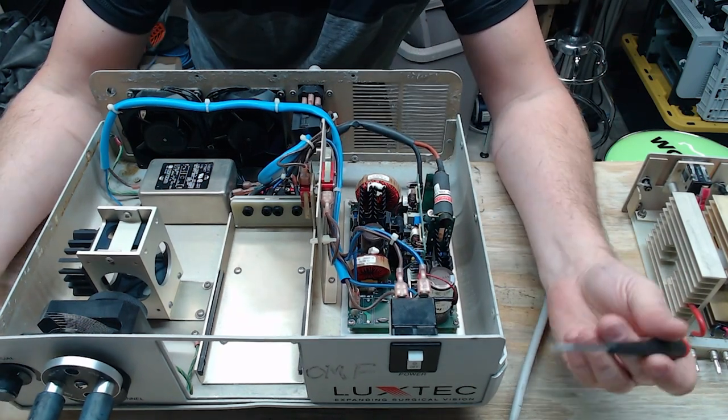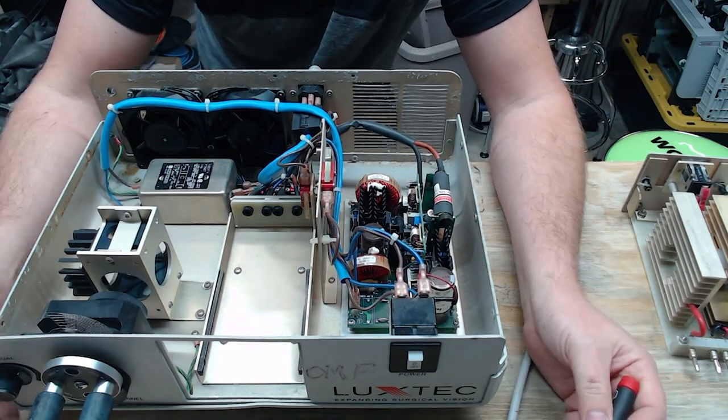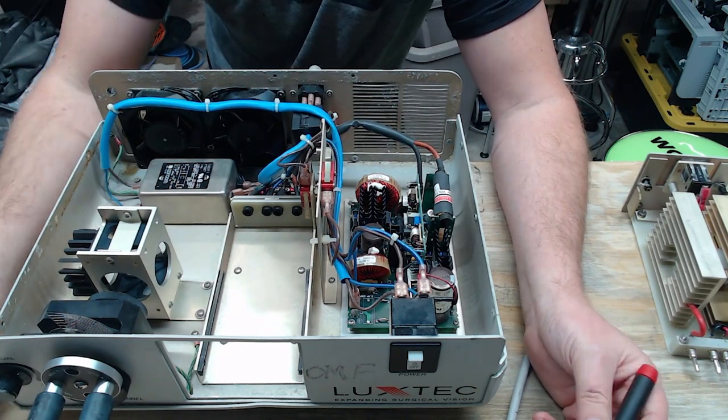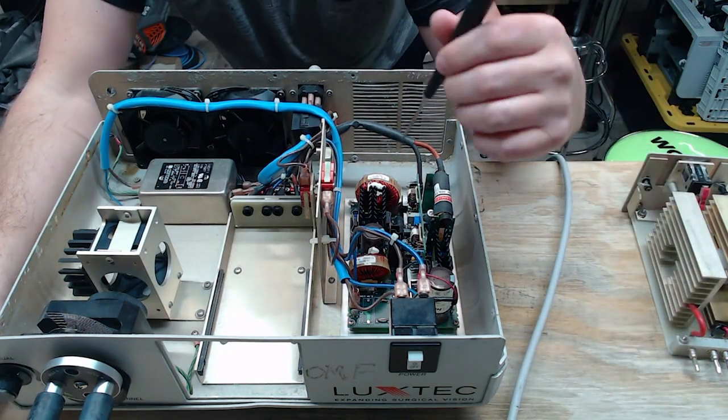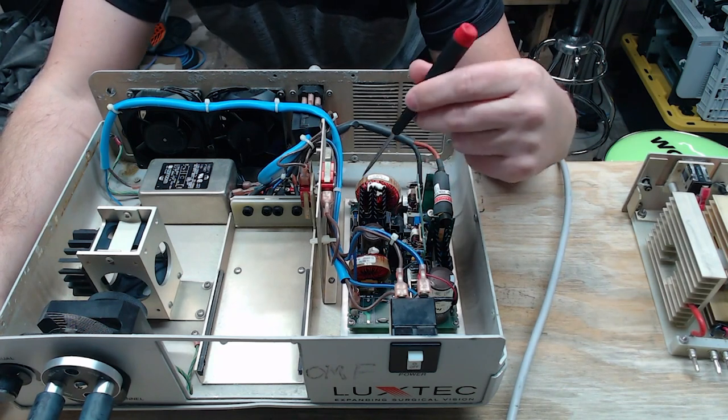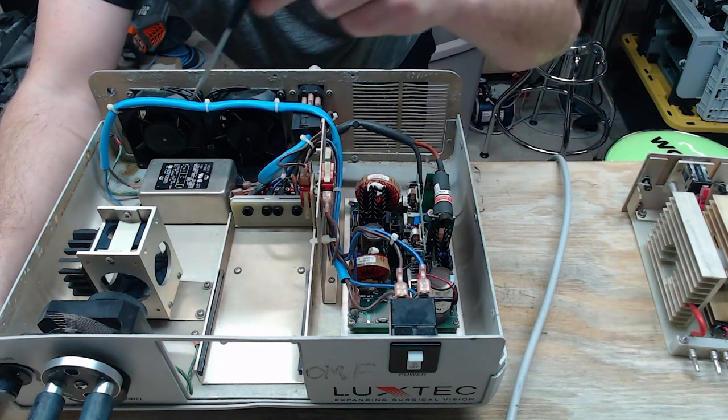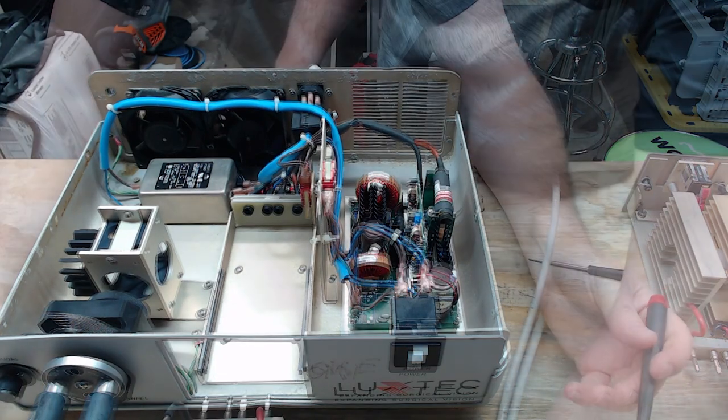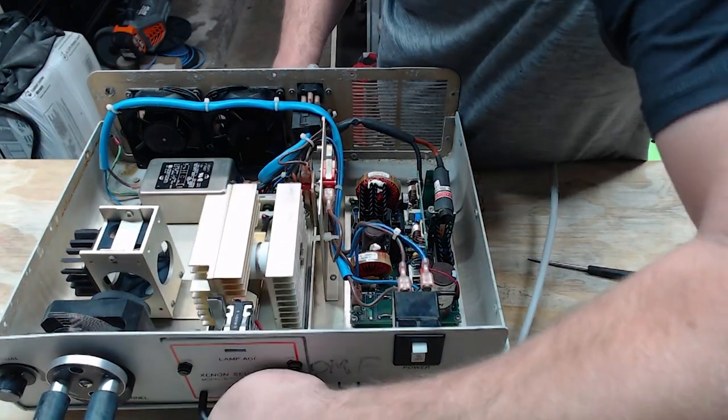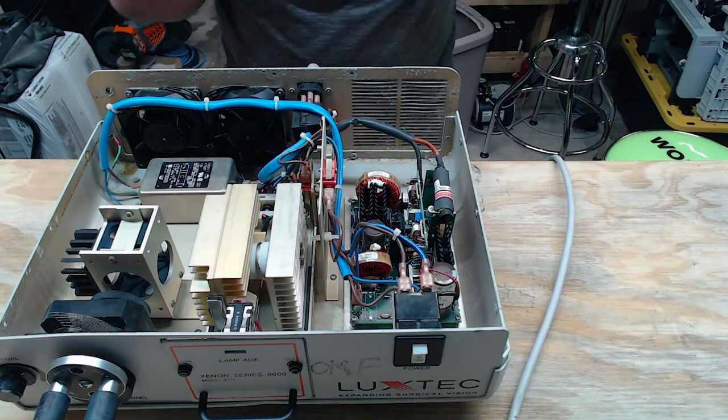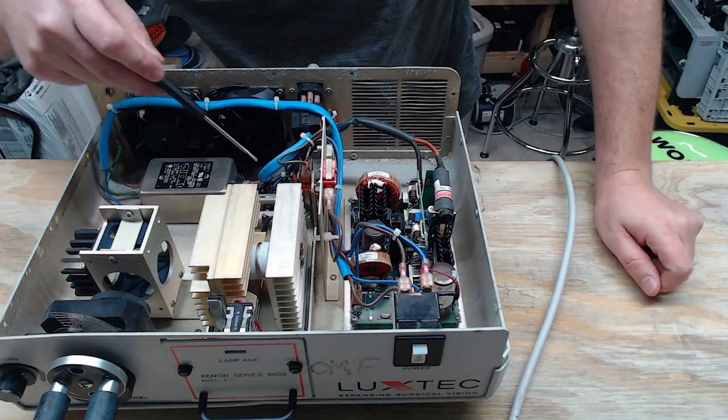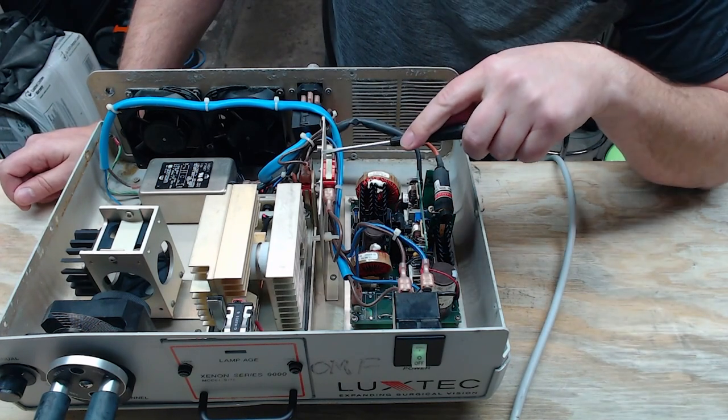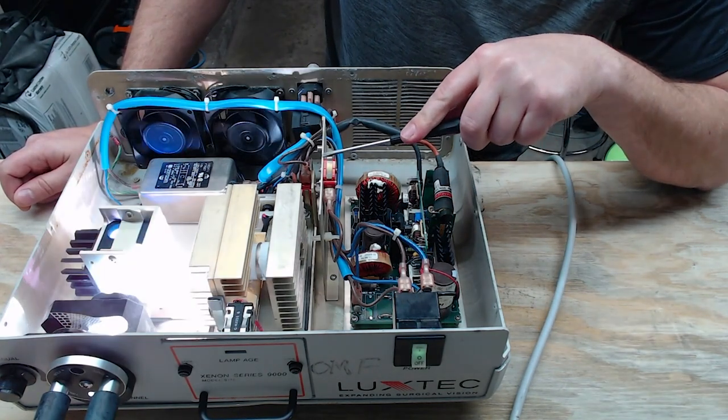Now, the bulb is only about $220. This power supply and power supplies in these Xenon light sources, they're easily $1,200 to $2,500 depending on the light source. So always change the bulb if it's not lighting up. So here I've got the bulb. I'm going to go ahead and put it in. It activated the first interlock and there's the second one.